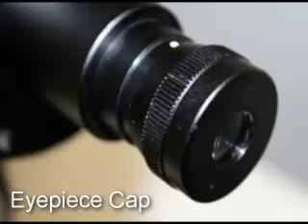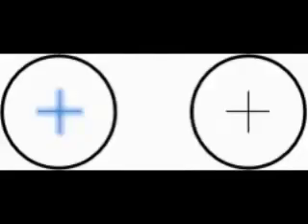After you focus the eyepiece, turn the instrument on and look through the eyepiece. You will see a plus sign. Continue looking through the eyepiece. Turn the eyepiece cap clockwise until the plus sign becomes sharp and in focus. Do not turn the eyepiece cap back and forth as this will stimulate accommodation.